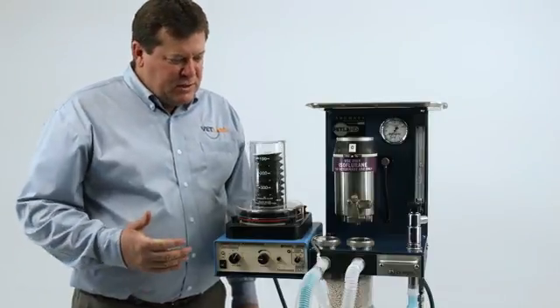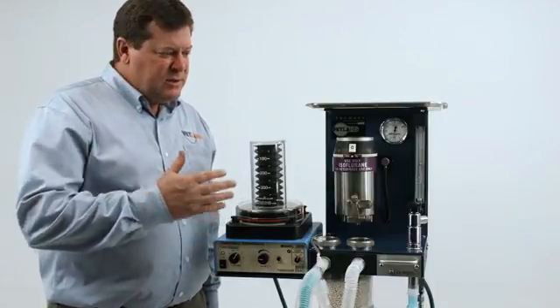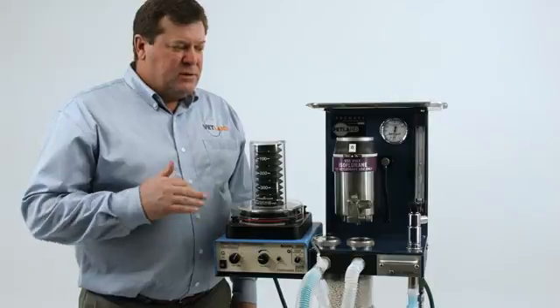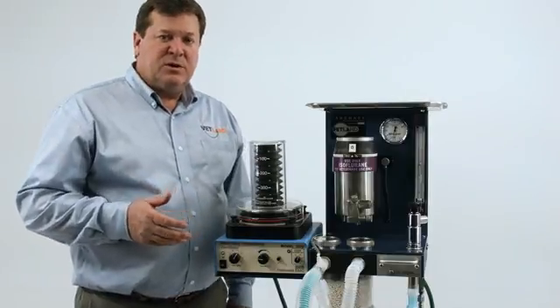In this video we want to demonstrate how you can add an attachment to the anesthesia system for those instances where you need positive pressure ventilation.